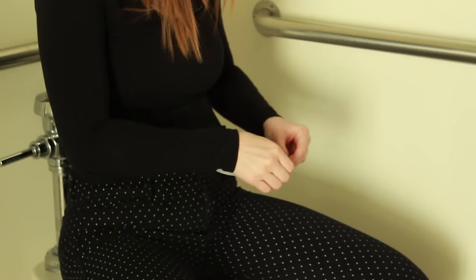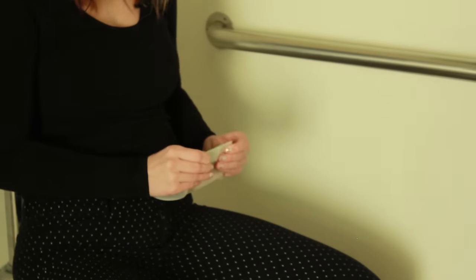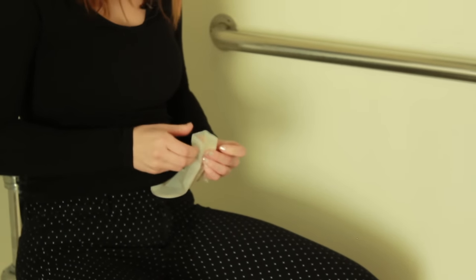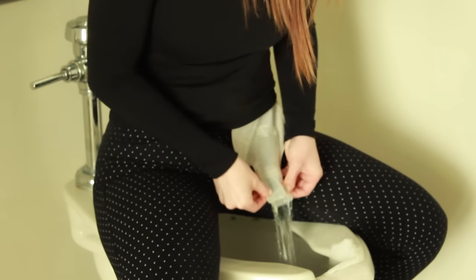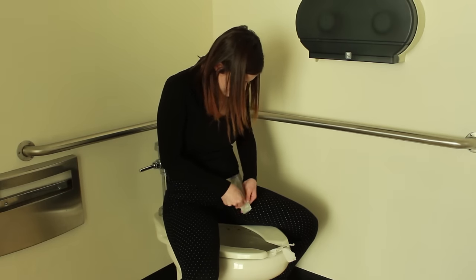What you want to do is unroll the pouch, keeping the outlet facing up first. When you know where you want to aim it, open the outlet up, aim into the bowl, and empty the pouch. There was very little splashing. Make sure that everything's out.